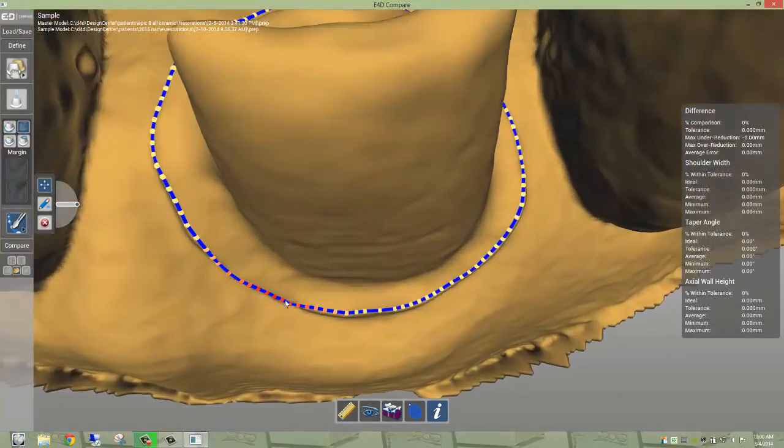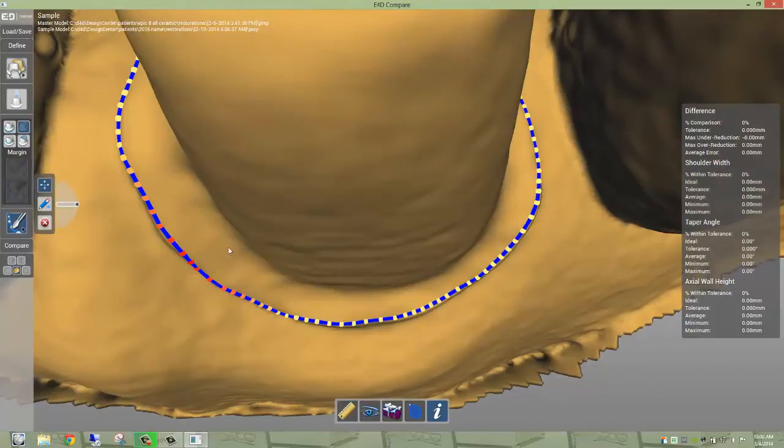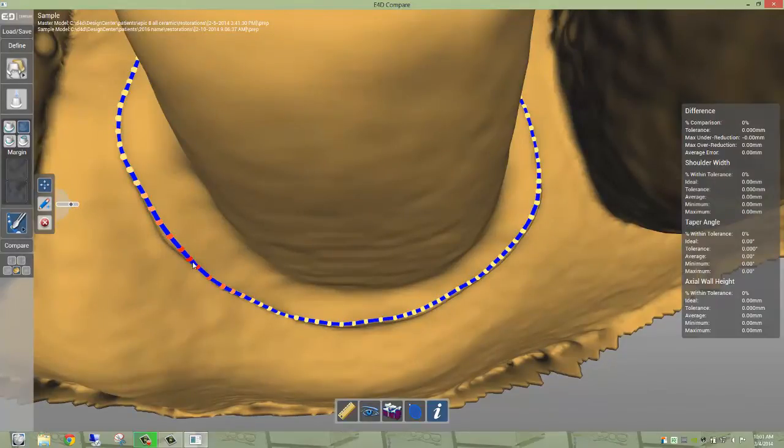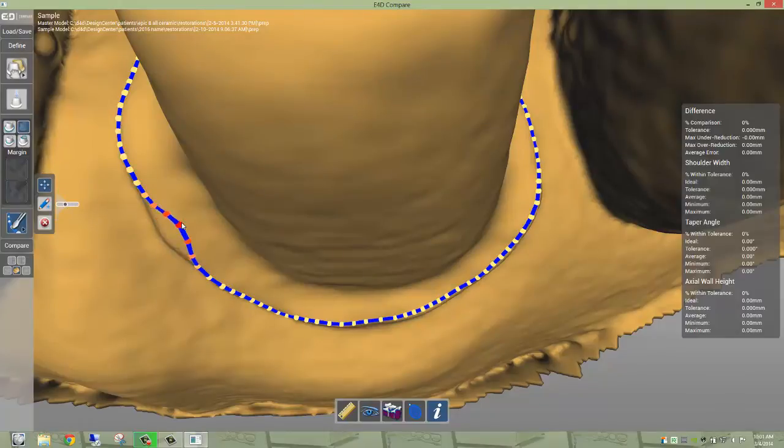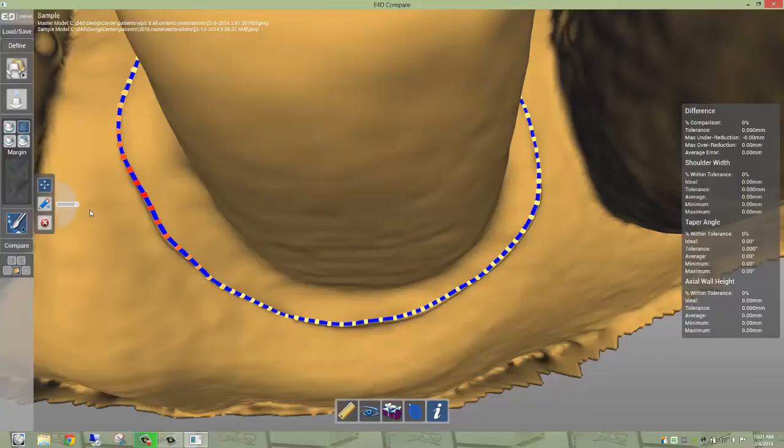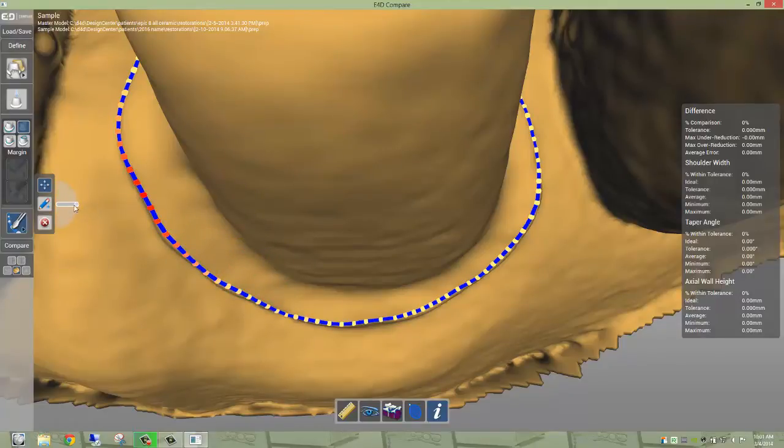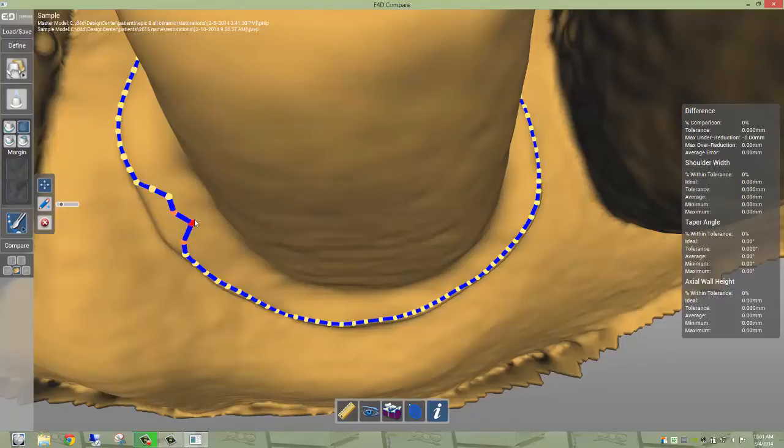And this margin move tool has a couple features. If you look at this bubble here, if you make it tiny, like make it about that small, you can only move a little bit, okay? If you make it big, you can move a ton of your margin at the same time. So it's just customization. You want to just move a tiny little bit.